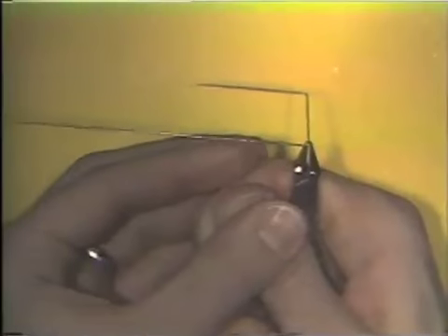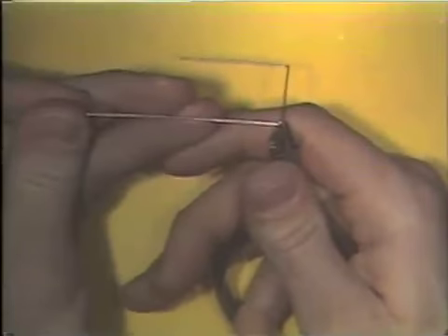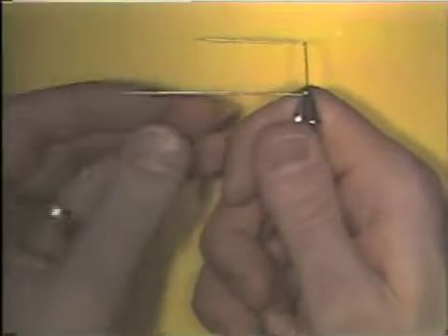The best way to ensure control of plane and space is to control it as you're making the bends in the wire the first time. Correction of flatness of a wire is a difficult procedure, and it's so much easier just to do it as you're making it.